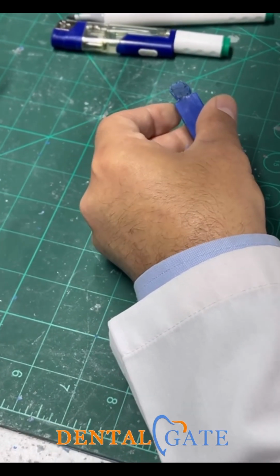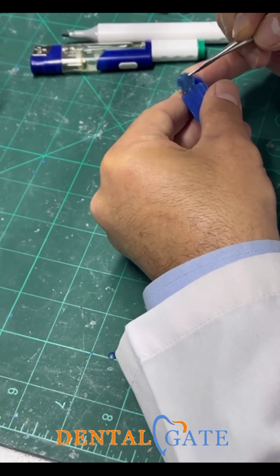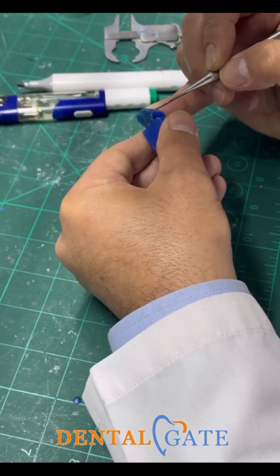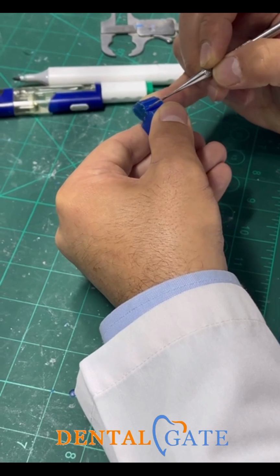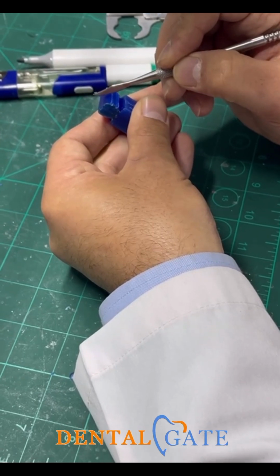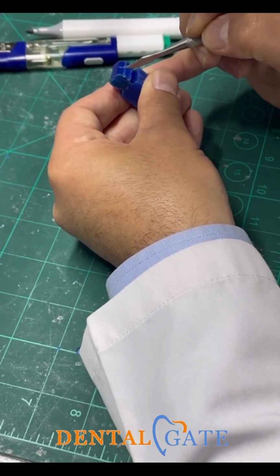But as in the previous lab, we will extend the thirds before starting. We will extend the thirds that will represent the 3/3 of this length. We have 9 millimeters, so we need 3, 3, 3. It will be equalized into 3/3. I need a bisecting line here because I need to divide the one measurement.